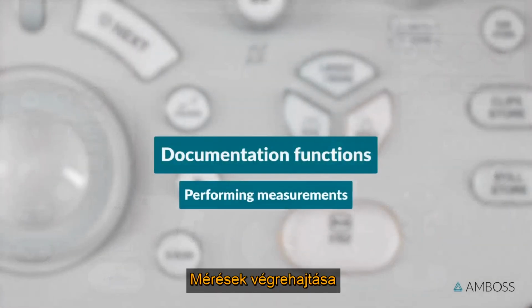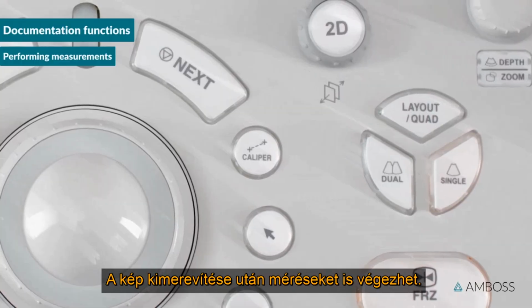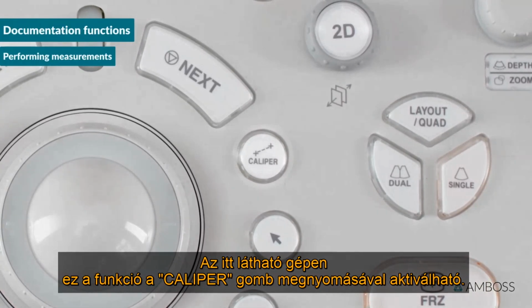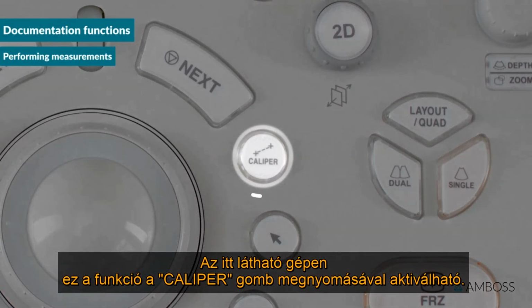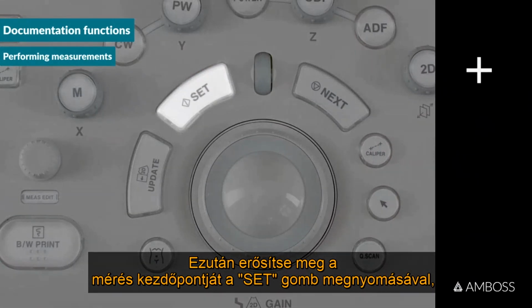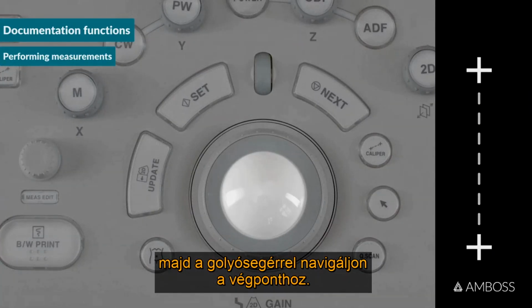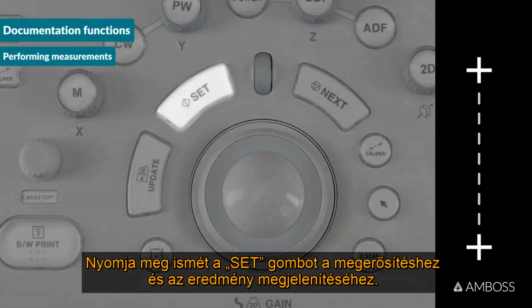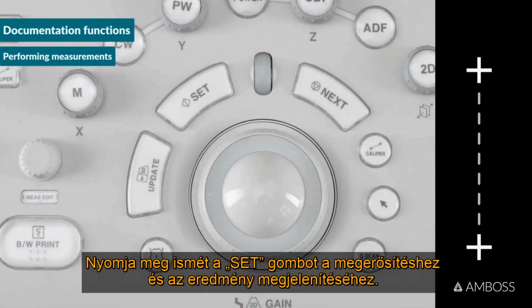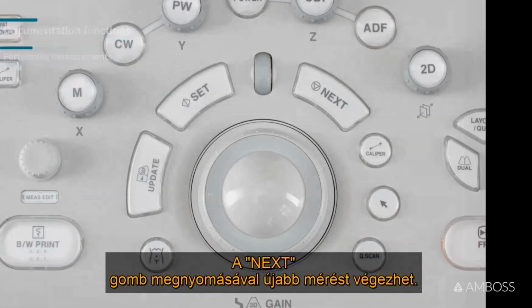Performing measurements. Once you've frozen the image, you can also perform measurements. On the machine shown here, this function is activated by pressing the caliper button. Next, confirm the starting point of your measurement by pressing the Set button. Then use the trackball to navigate to the endpoint. Press Set again to confirm and display the result. Pressing the Next button allows you to take another measurement.